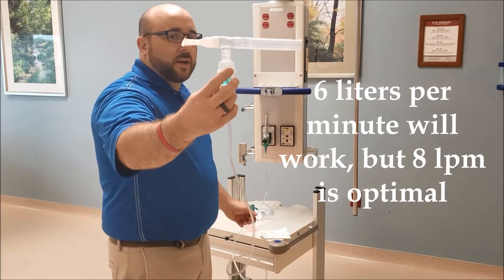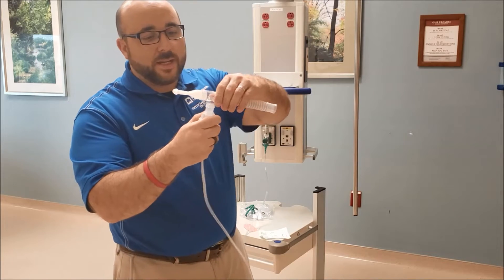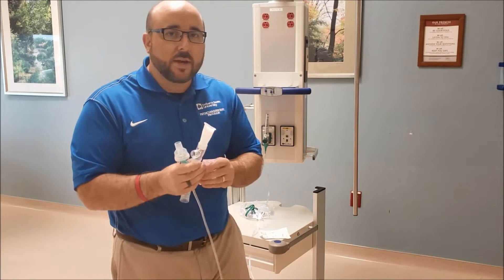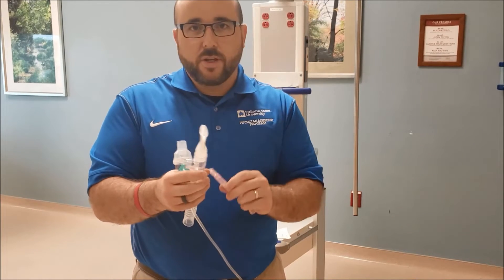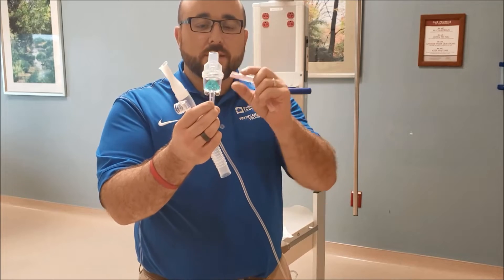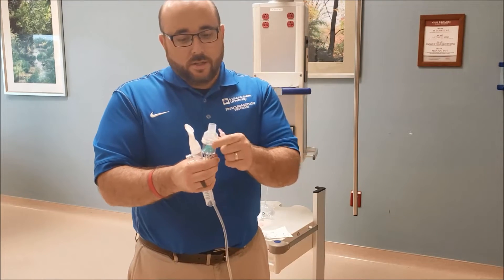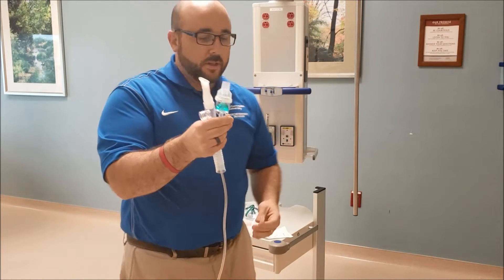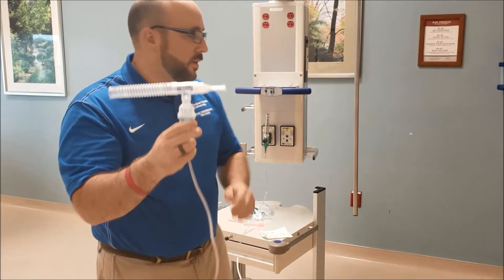In this case, I'm going to do it with oxygen, so I'll turn this up to six liters. You can hear it running through there, but there's no nebulized medication yet. So shut that off to add medication. We just simply take off this part and add it in here. The absolute key is that when you run a medication in these, you have at least three milliliters of volume — do not put one or two milliliters. At least three milliliters, and I wouldn't go more than six in most cases, because it's going to affect particle size. So we have our five ml normal saline bullet — we'll put about three in there.